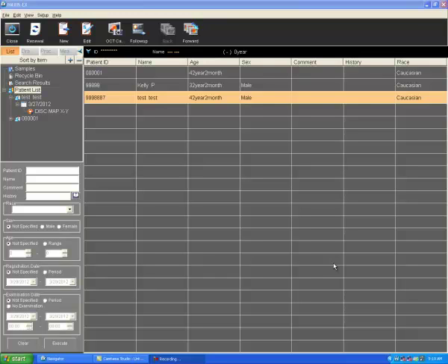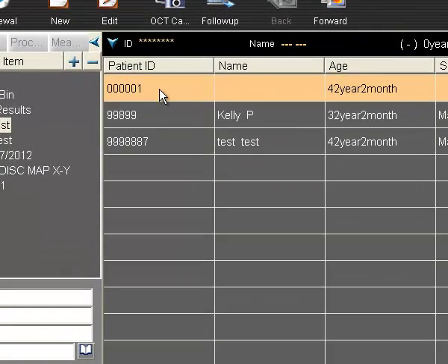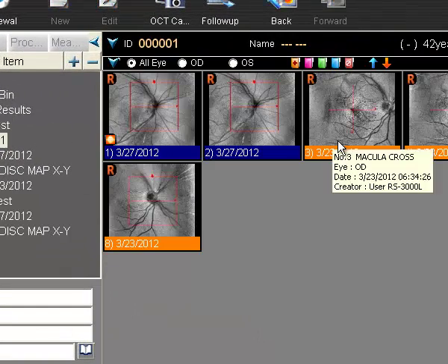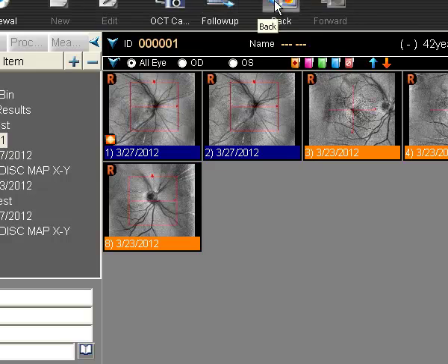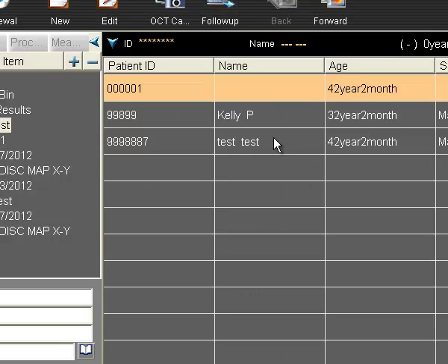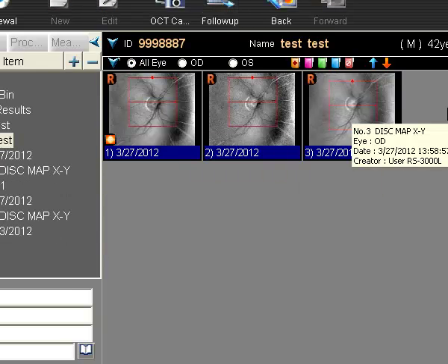For example, on your RS3000 if you have a patient which you've scanned under the incorrect name, you are able to merge that patient and get the files into the correct scan. For example, here we have a record with no name, however we have the same age and same date of birth. So this patient with their scans should have been scanned under this patient here.